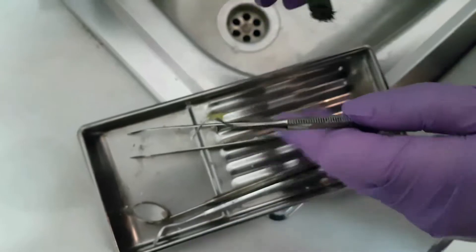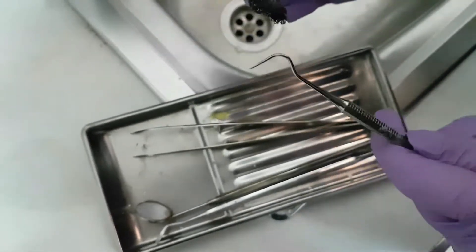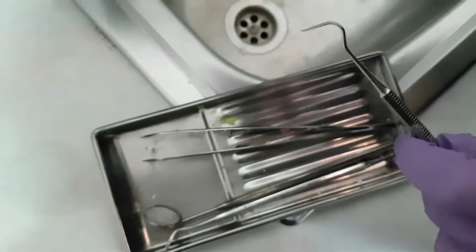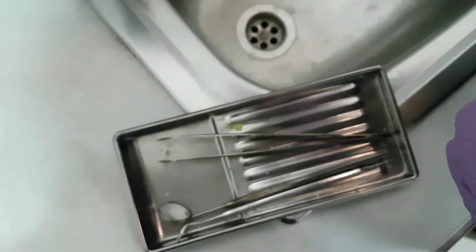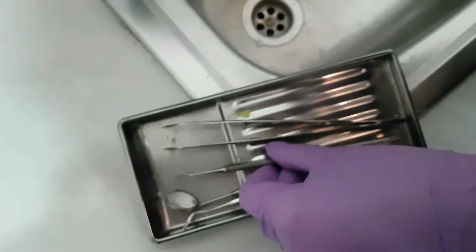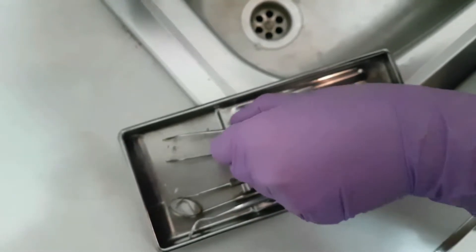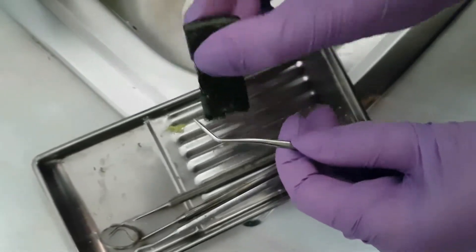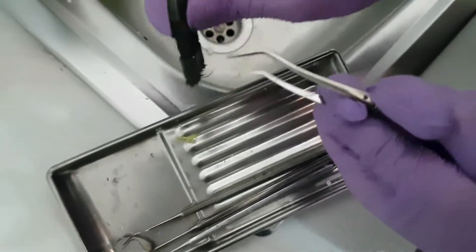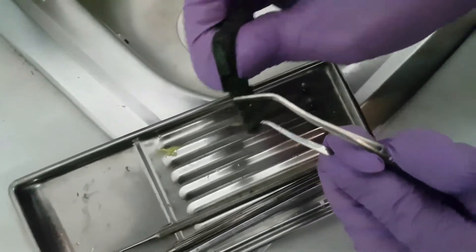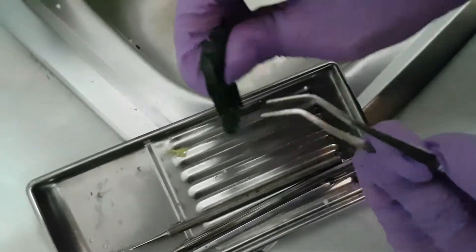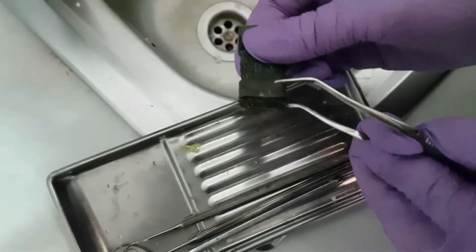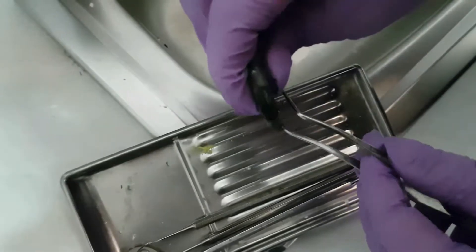As you can see, we clean each instrument part and every instrument individually. This is useful so we keep our instruments ready for work as long as possible and clean for the health of the patients and for our own health.